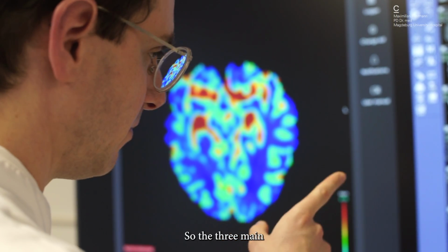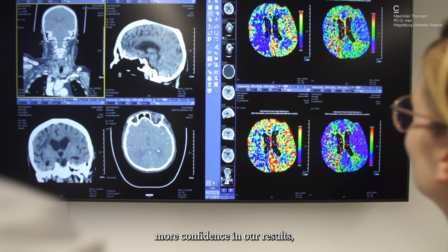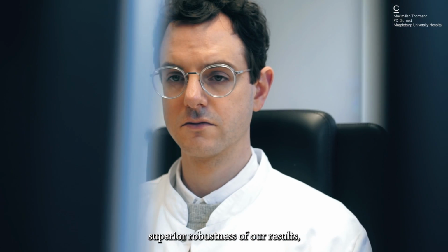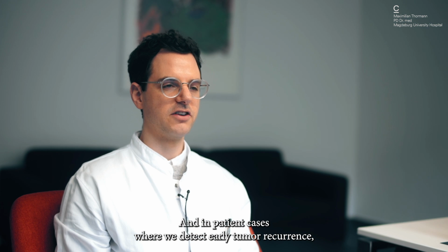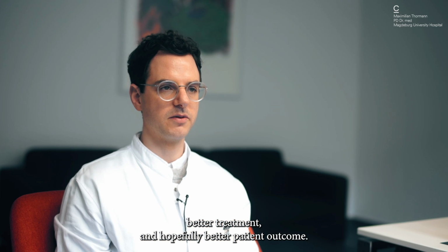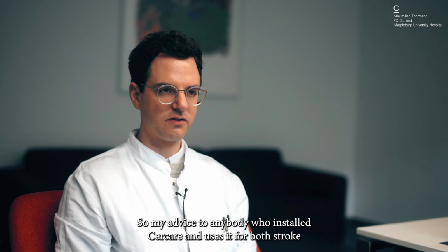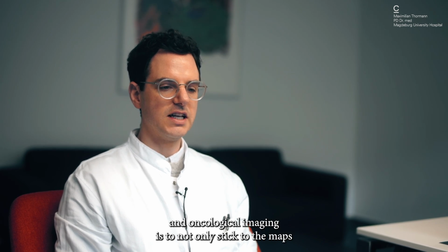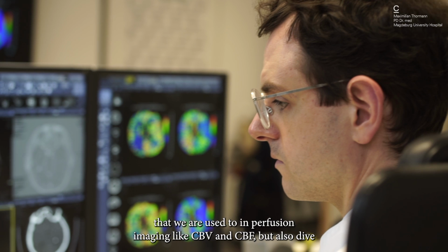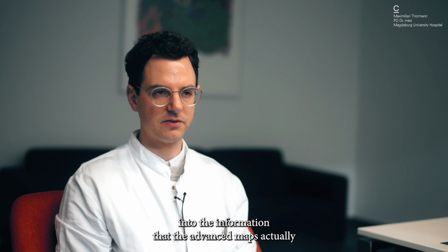So the three main benefits for us when using Cercare in clinical routine are more confidence in our results, superior robustness of our results, and in patient cases where we detect early tumor recurrence, better treatment and hopefully better patient outcome. So my advice to anybody who installs Cercare and uses it for both stroke and oncological imaging is to not only stick to the maps that we are used to in perfusion imaging like CBV and CBF, but also dive into the information that the advanced maps actually can provide.